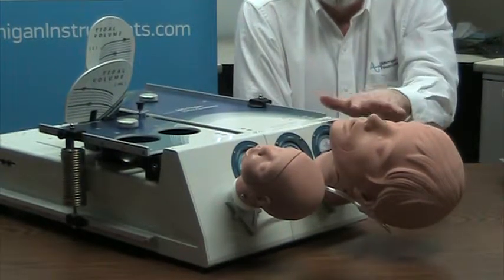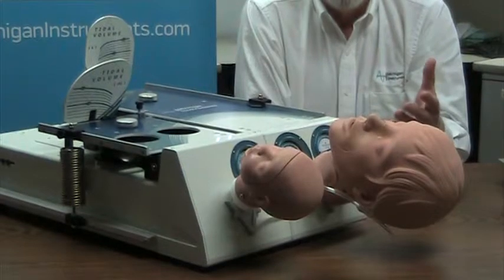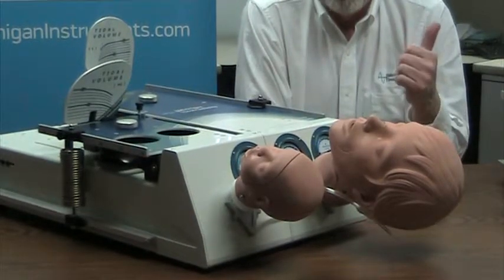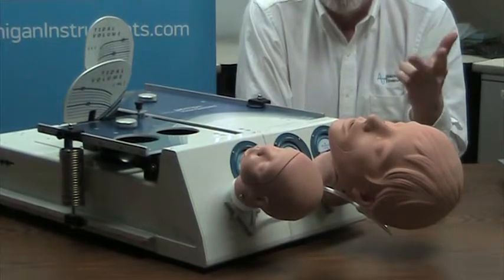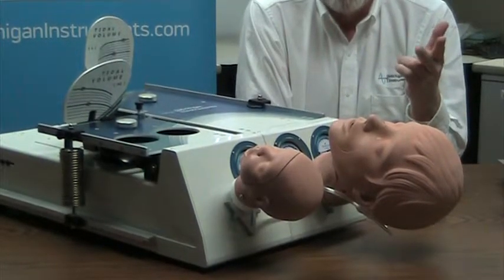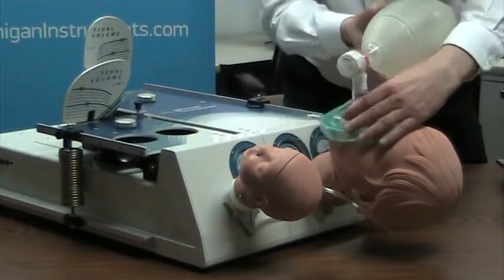When you have the adult head simulations in place, this expands the applications. Now you can evaluate or demonstrate BiPAP systems, CPAP systems, non-invasive ventilation, or even something as basic as bag valve mask performance, such as this.